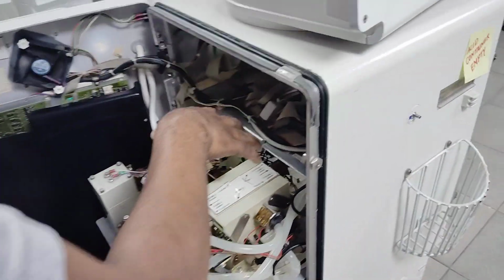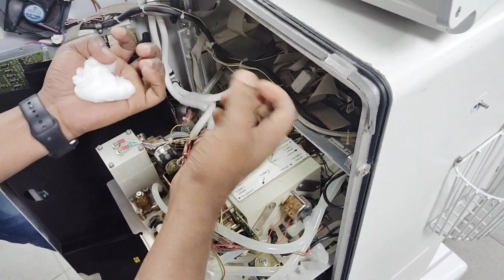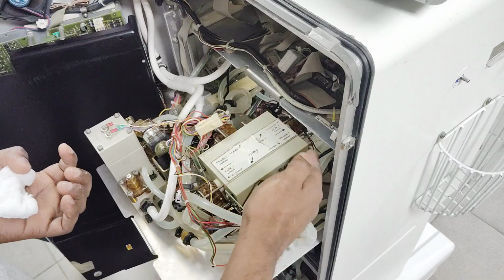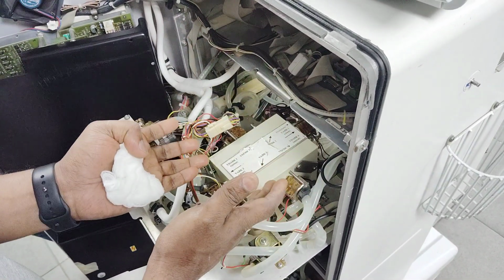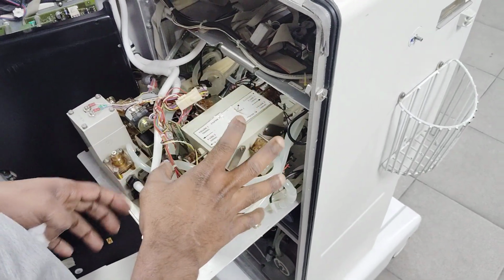When the DF flow, I mean the dialysate flow, is prepared in the lower part, after that stage it will send the water to this stage. There are inlet valves and outlet valves. There are many solenoid valves here, in different places, and they have different functions.